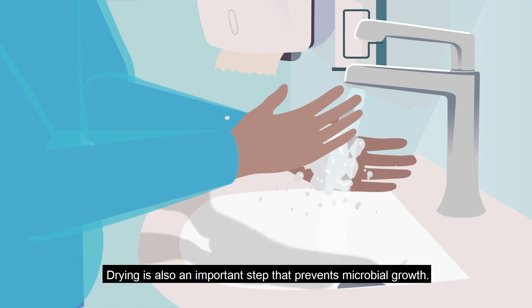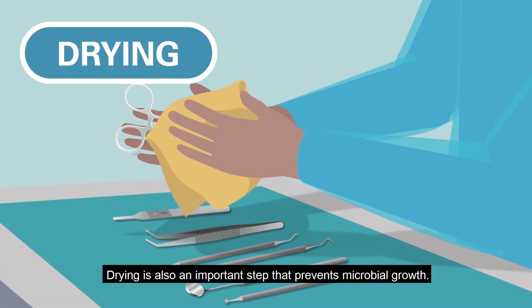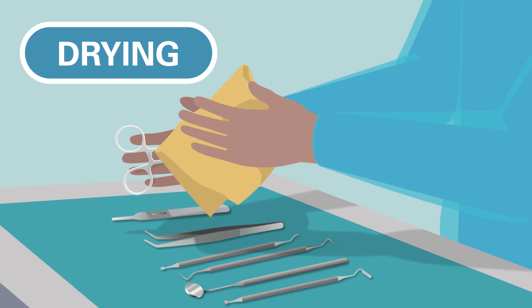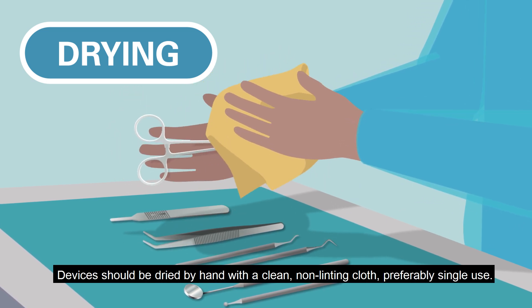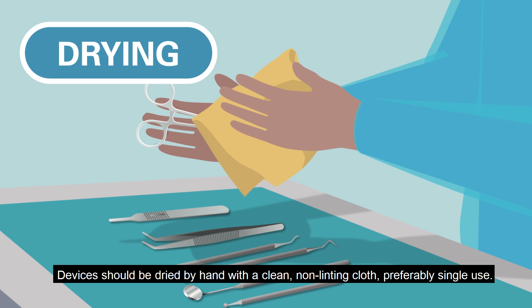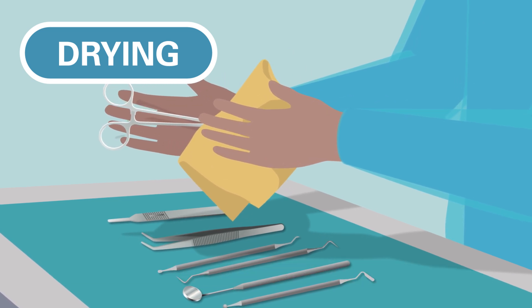Drying is also an important step that prevents microbial growth. Devices should be dried by hand with a clean non-linting cloth, preferably single use.